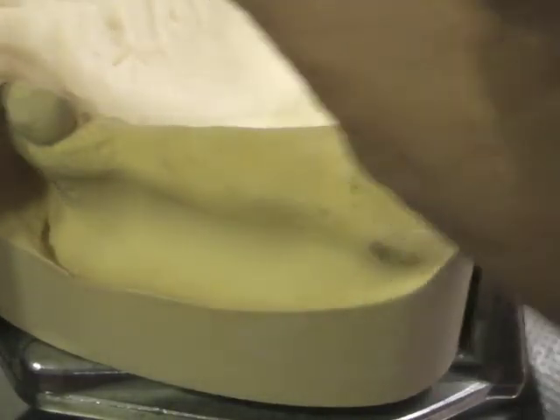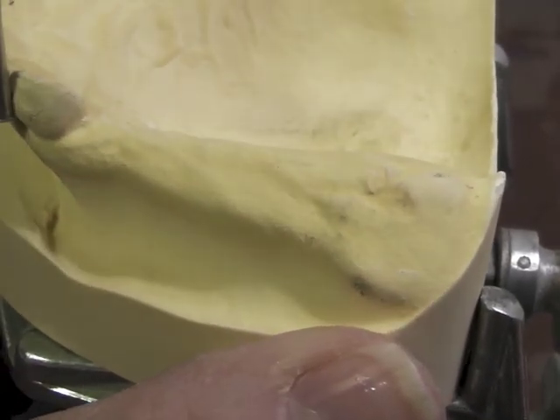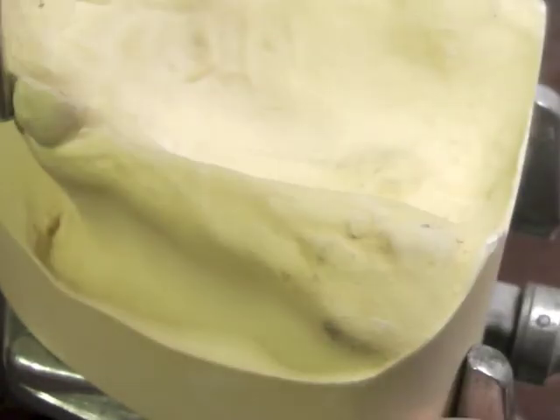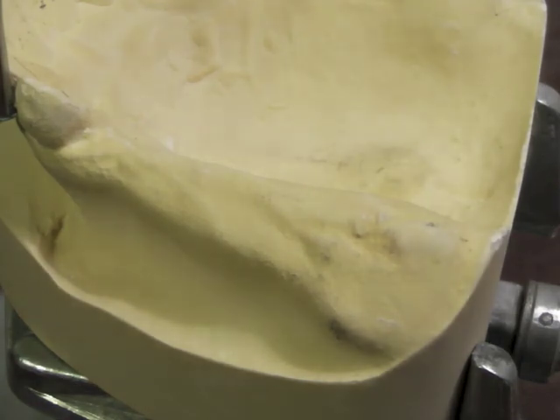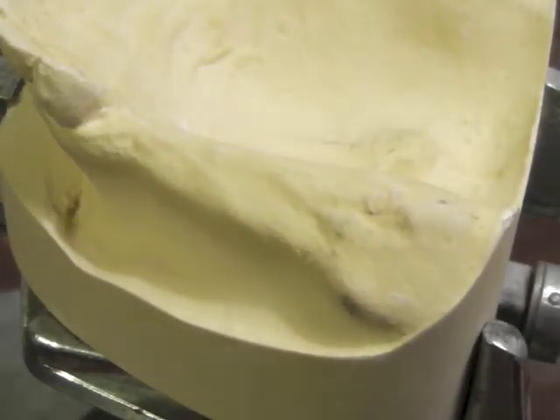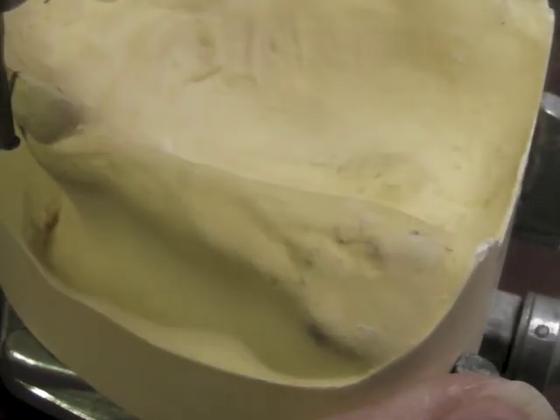I would like to use maybe a cast clasp, which would be the cast round clasp. That would require a 0.01 undercut. And if I look at this tooth, I have a 0.01 undercut on that tooth. I've taken my surveyor - the vertical aspect of the rod touching, you move it down and then pull it back up until that little horizontal lip touches the tooth, and that's your 0.01 undercut. I think I also have a 0.02 undercut on that tooth. The advantage of a wrought wire clasp would be that it could be a little bit lower on the tooth, therefore a little more aesthetic than that cast round clasp.